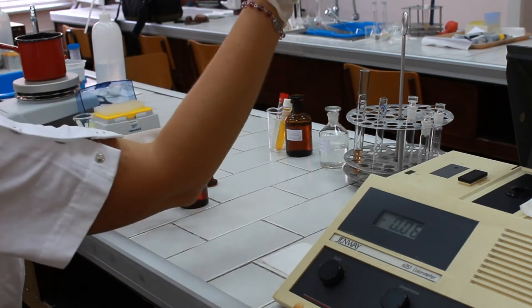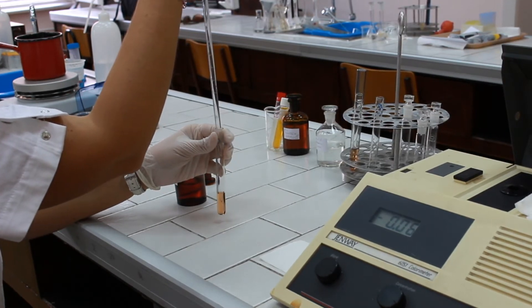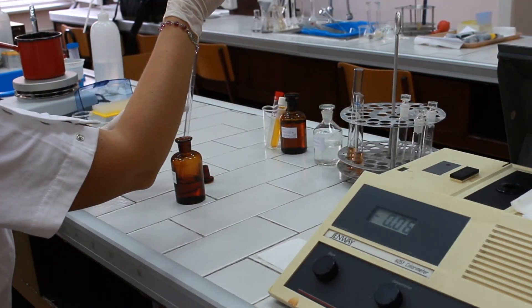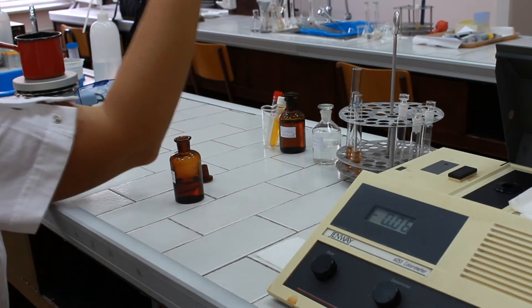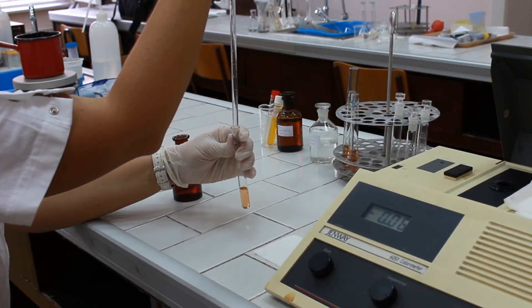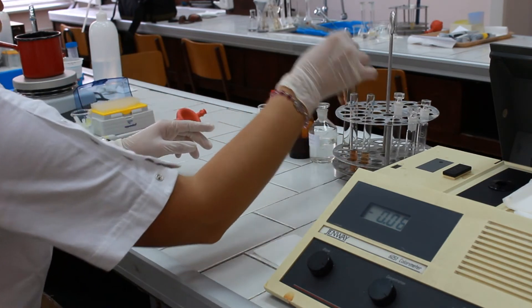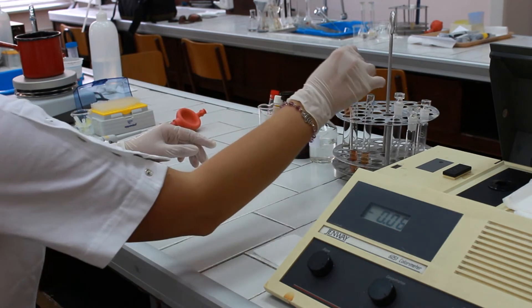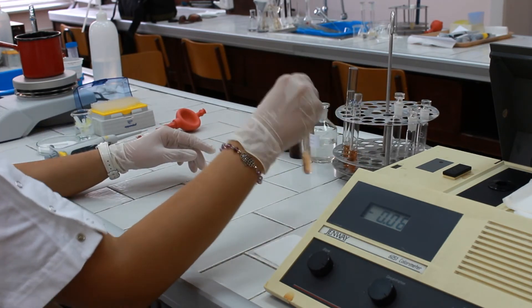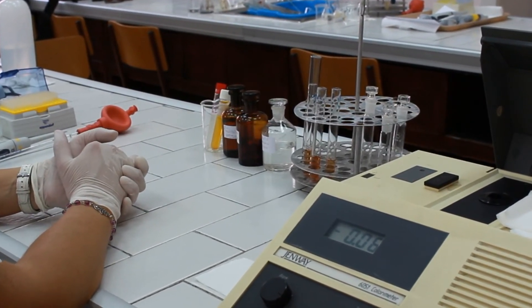Mix the tubes and incubate at room temperature for a couple of minutes, then measure absorbances at 490 or 520 nanometers.